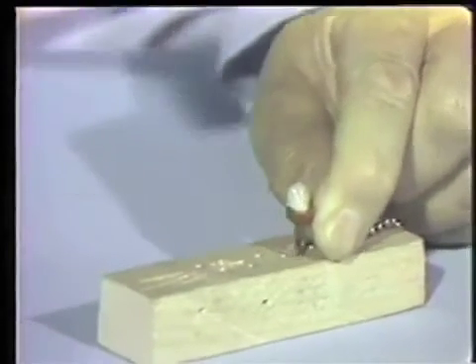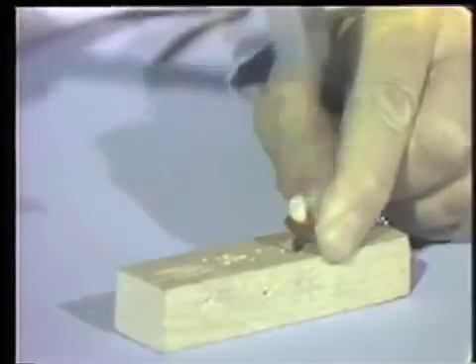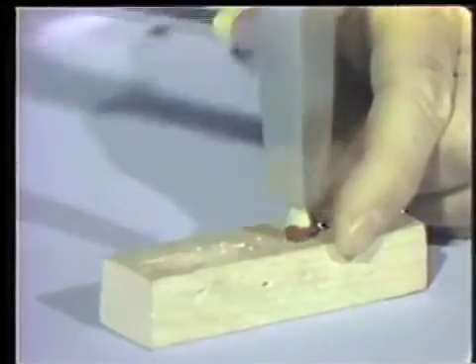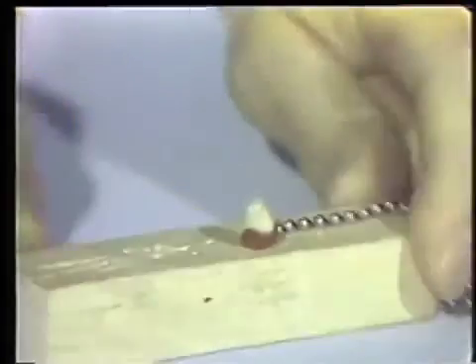We'll hold the crown and the nail over the board, and then we just drive it right into the board. And you see the crown survived and didn't fracture.